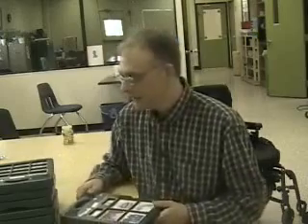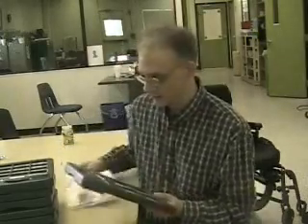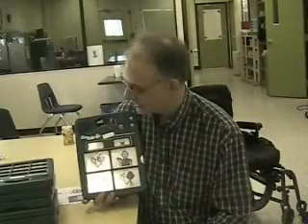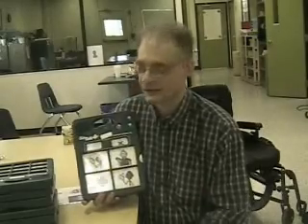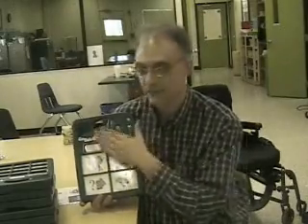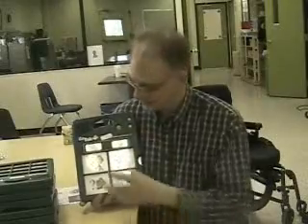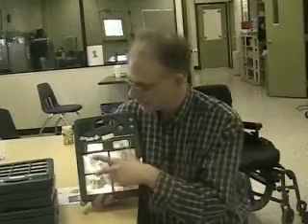I have about three different kinds here that I'm going to show you. I'll show you the basic one, which is called the GoTalk 4. This overlay doesn't go with this machine, but I'm putting it in here just to show you how I use this. This is called the GoTalk 4 Plus. The plus stands for these more static expressions up here that are the same over all levels. The GoTalk 4 Plus has five levels, meaning I can have five different overlays with four different expressions on each one, for a total of 20 expressions for this one machine.